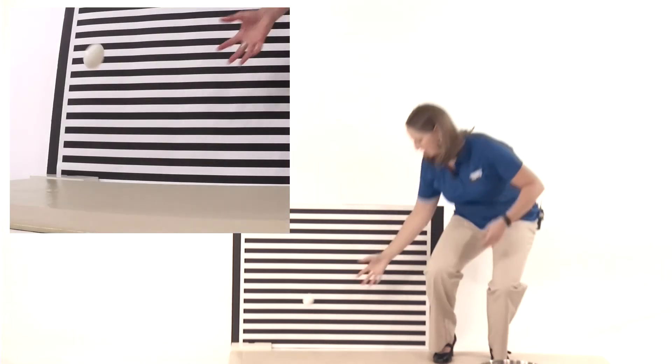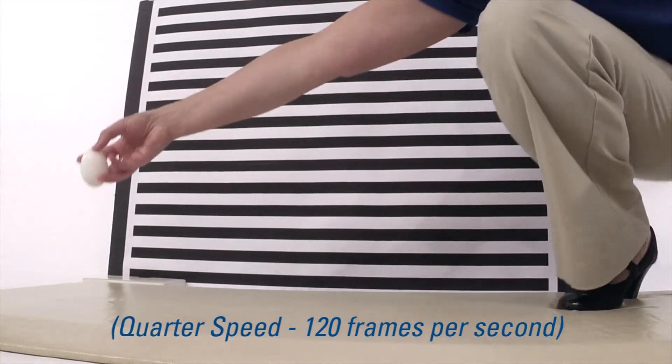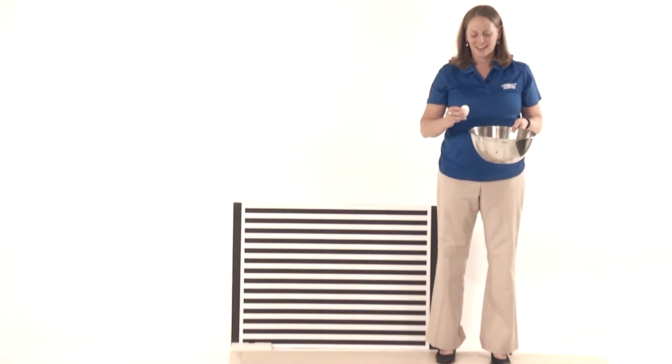The Direct Supply Panacea Protector Fall Mat is so good at what it does, you can even drop an egg on it and it won't break. Check this out, and yes, it's a real egg.